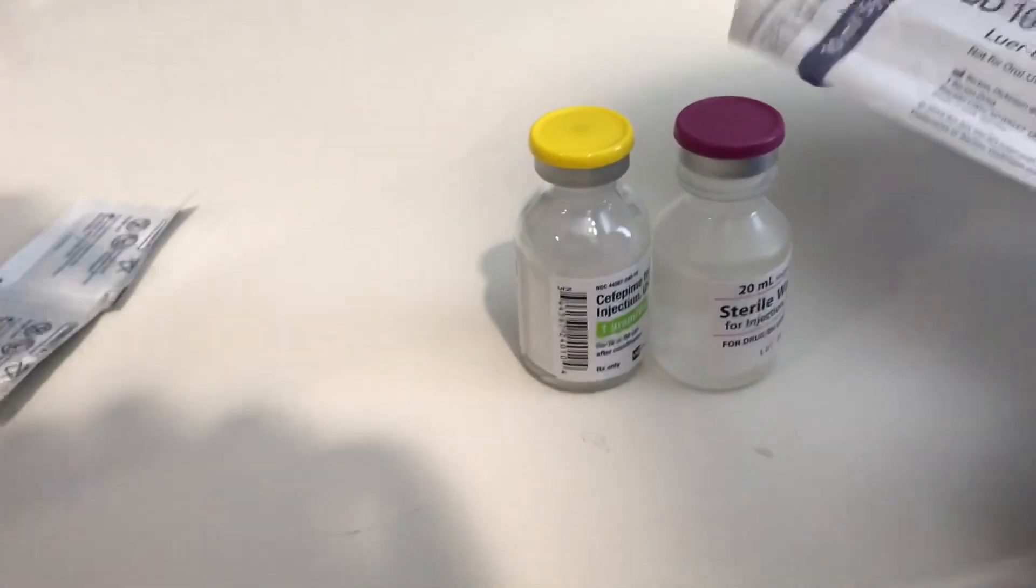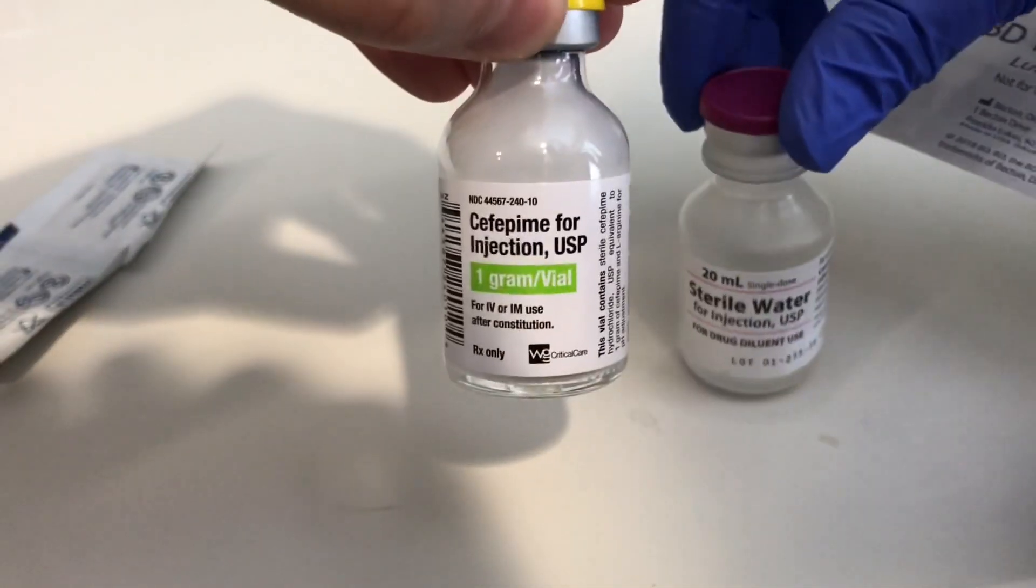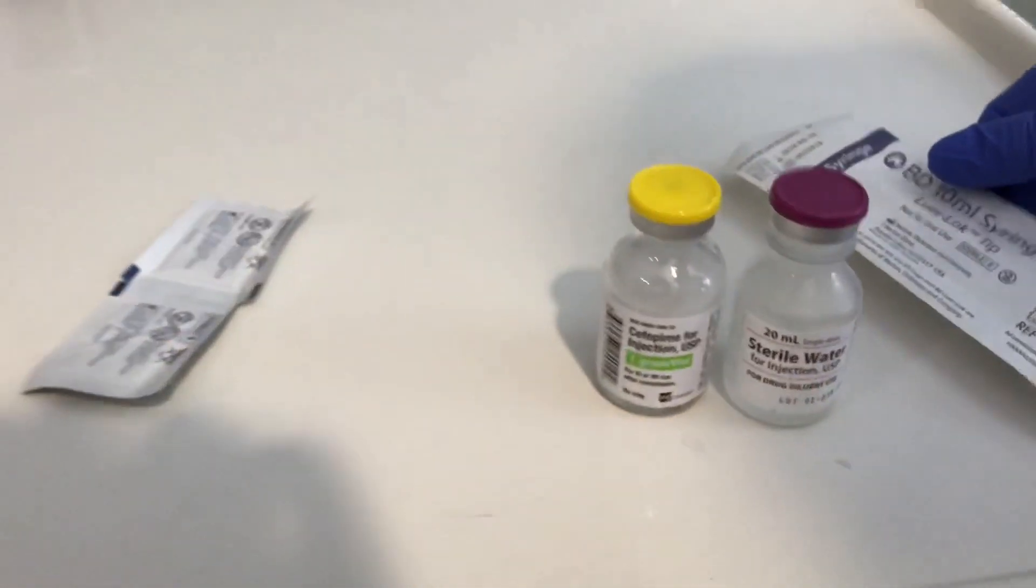How to mix antibiotics. Get your syringe, your antibiotic, your sterile water, some alcohol swabs.